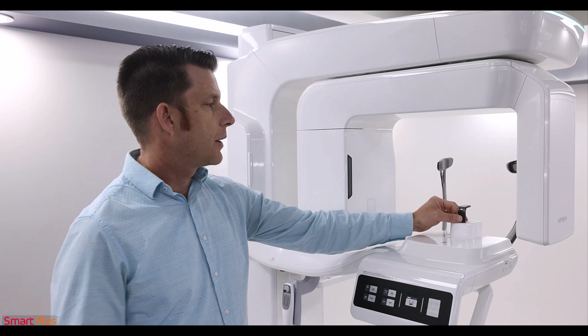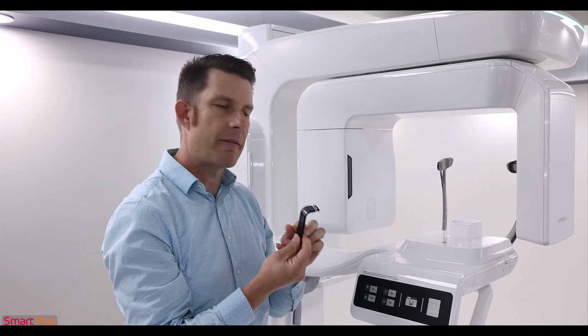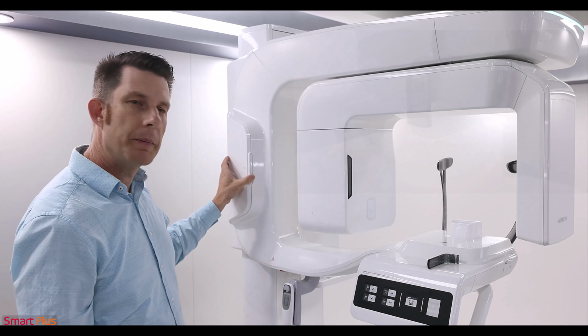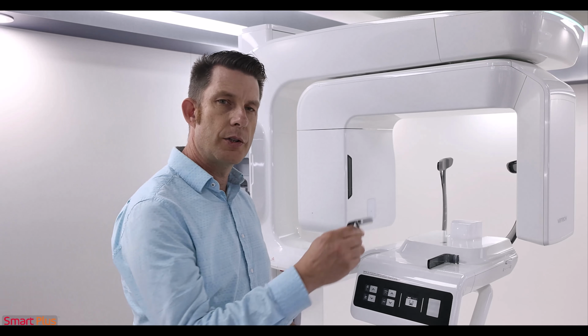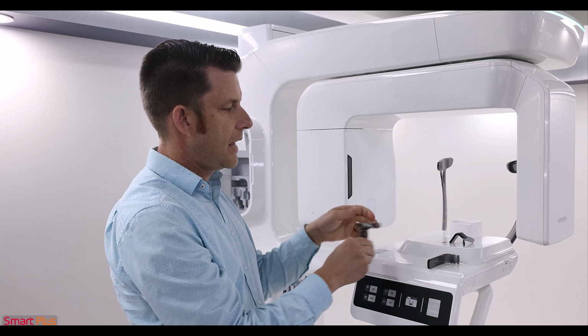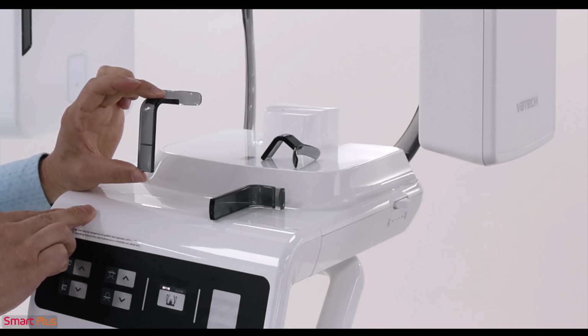Next, let's look at our appliances. The Smart Plus device comes with 3 separate bite appliances. Here I have our bite stick. On this side compartment, other appliances are included. We have our shorter edentulous cup and the taller two-dimensional TMJ and sinus appliance.